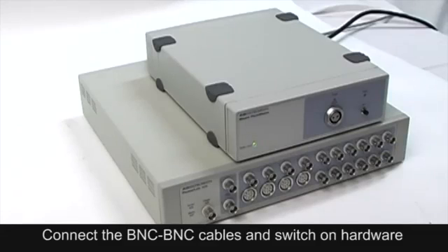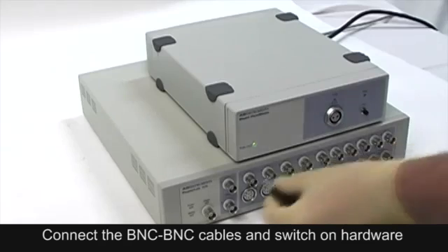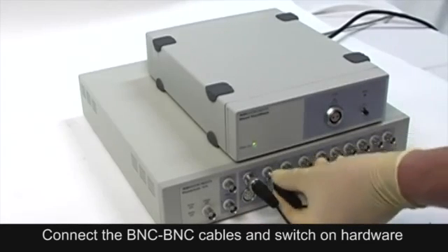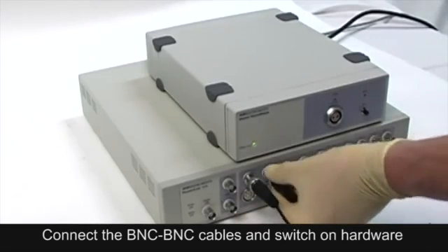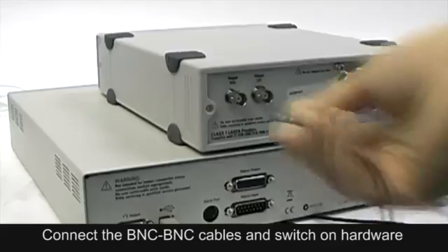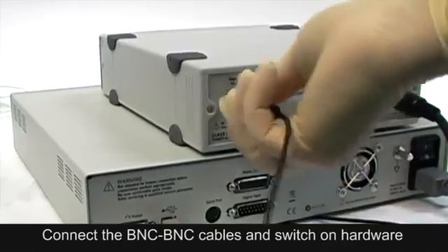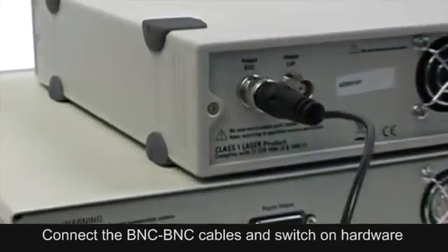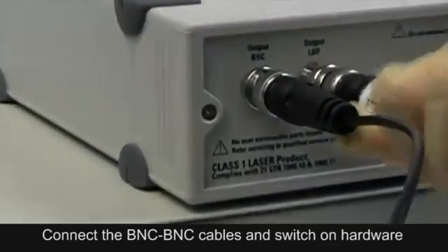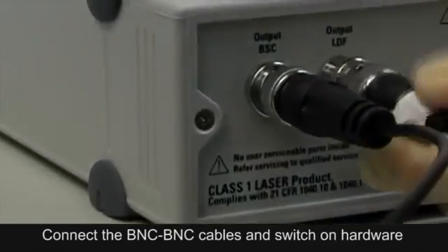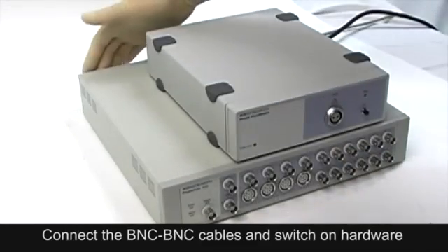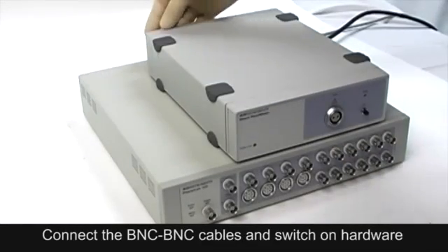Calibration procedure. To calibrate a new probe, follow the five steps described here. Firstly, connect the BNC to BNC cables. Switch on the PowerLab, the ML191 blood flow meter, and open the LabChart software.